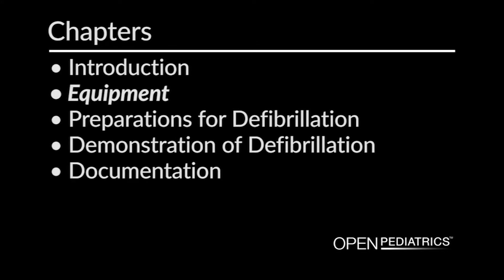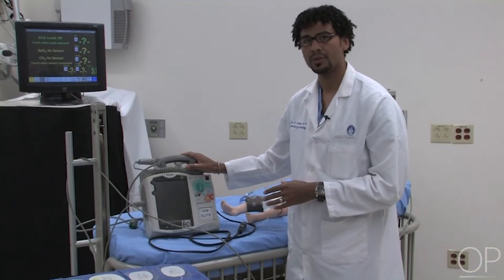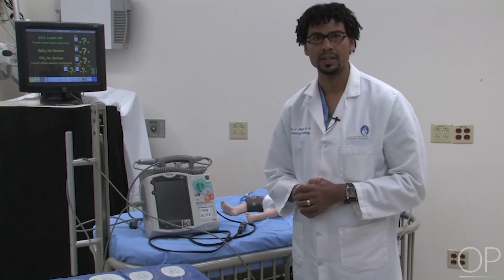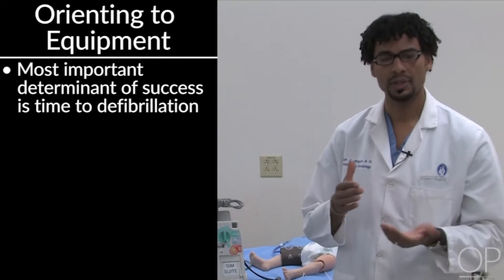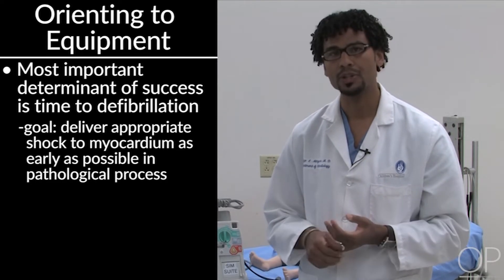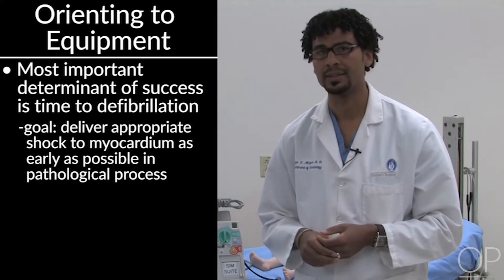The basic functionality is all going to be encompassed in the box. It is extremely important that in whatever environment you practice, you orient yourself to the functions available in your unit. There is considerable variation between manufacturers in where the buttons lie, and even between models made by the same manufacturer. To minimize the time you take to successfully defibrillate a patient, do orient yourself to your machine, because the most important determinant of success is delivering an appropriate shock to the myocardium as early as possible.